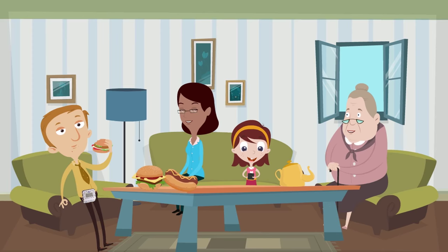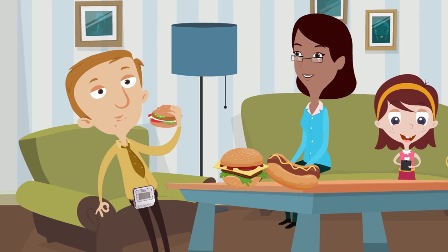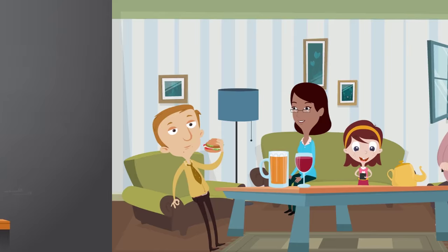We would like you to eat three meals, a couple of snacks, and at least one fatty meal each day. And if you drink alcohol, have a glass of beer or wine during the period. You will be recording your daily activities for 48 hours following the procedure.